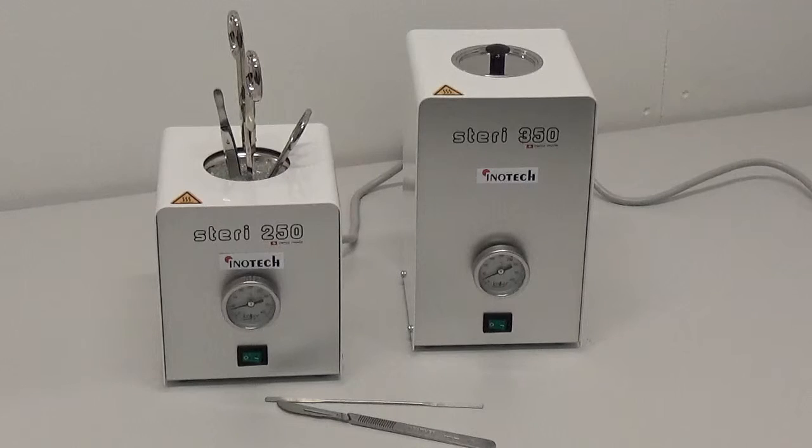The performance of the sterilizer is validated by the spore suspension test in US Pharmacopeia 22 Part 1211. In USA and Canada sterilizers are also UL approved and CE listed in Europe.